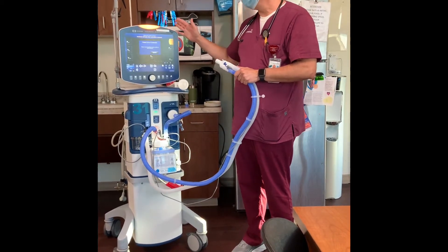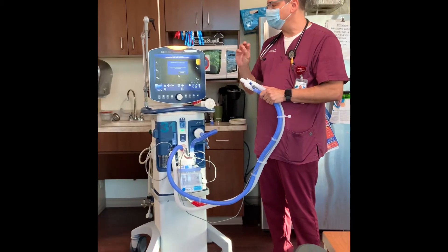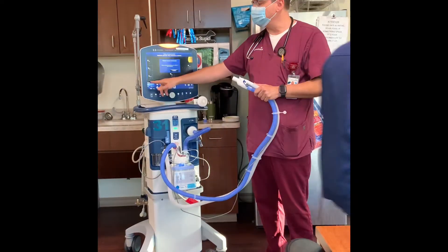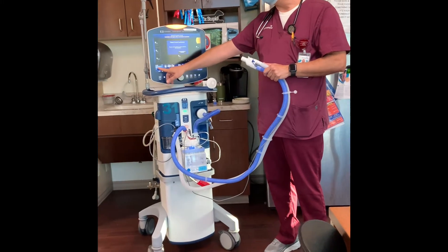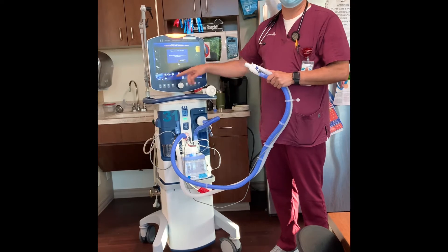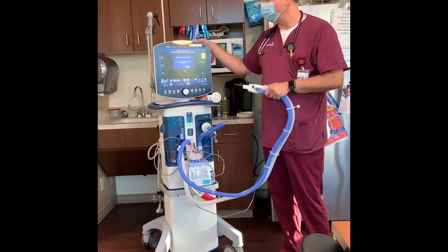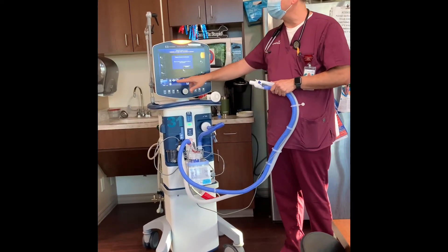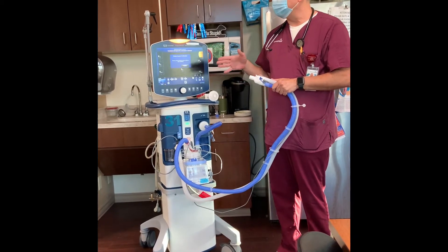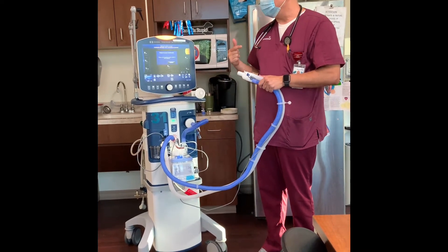We're talking about the four main settings that you'll see in that mode. Assist control is the mode, and there are four parameters that make it work. The first is the set respiratory rate — here it's set at 16 breaths a minute. So no matter what, at minimum, that patient is going to receive 16 breaths a minute.